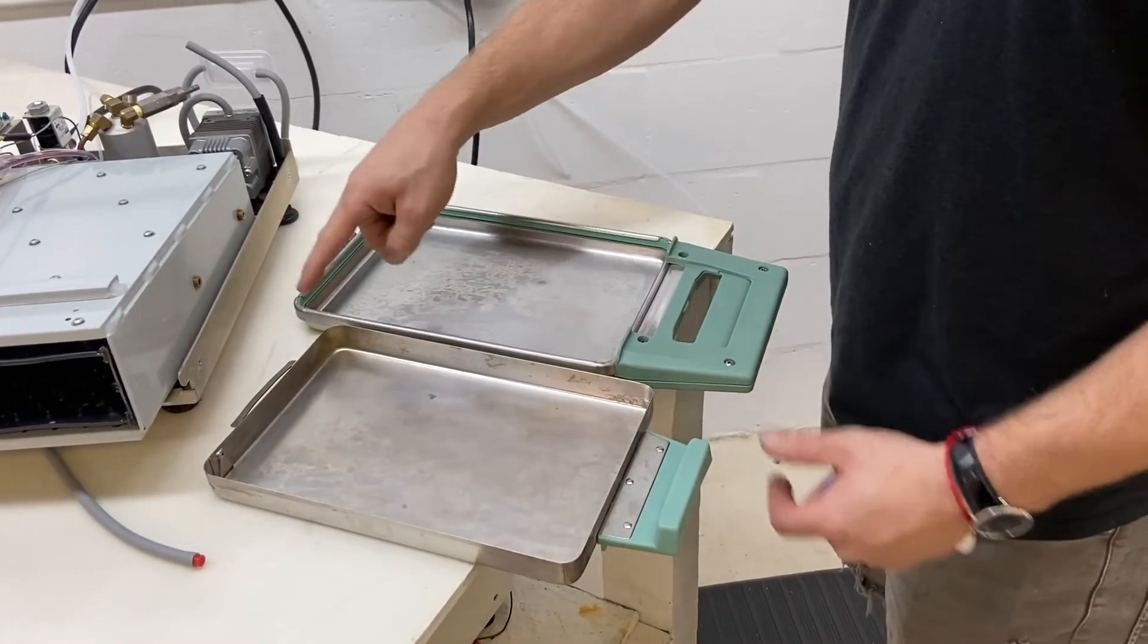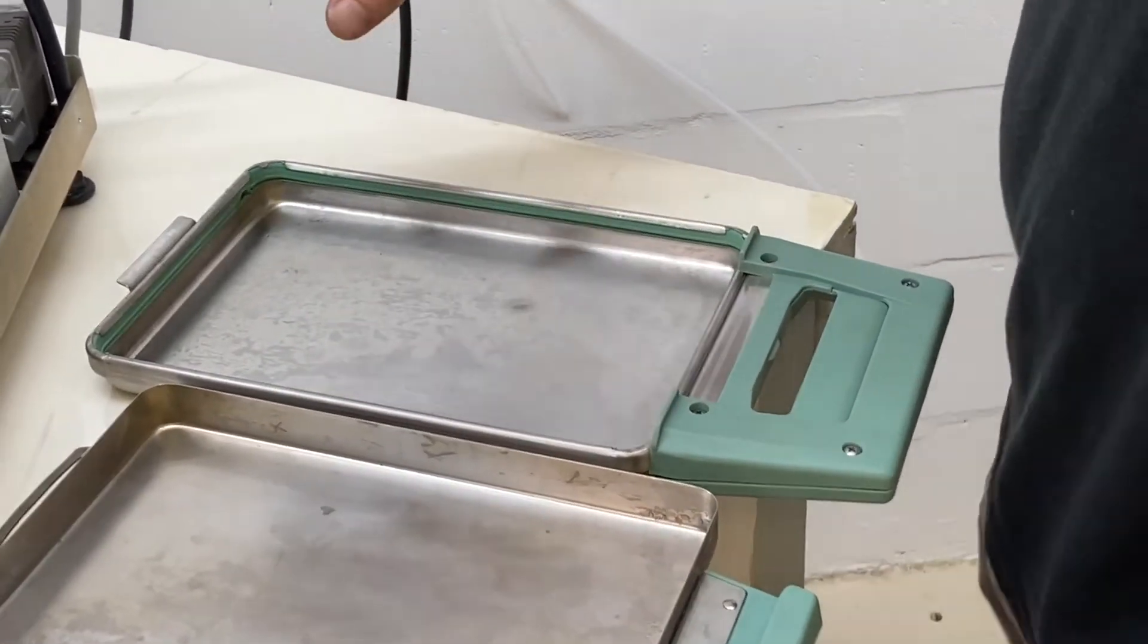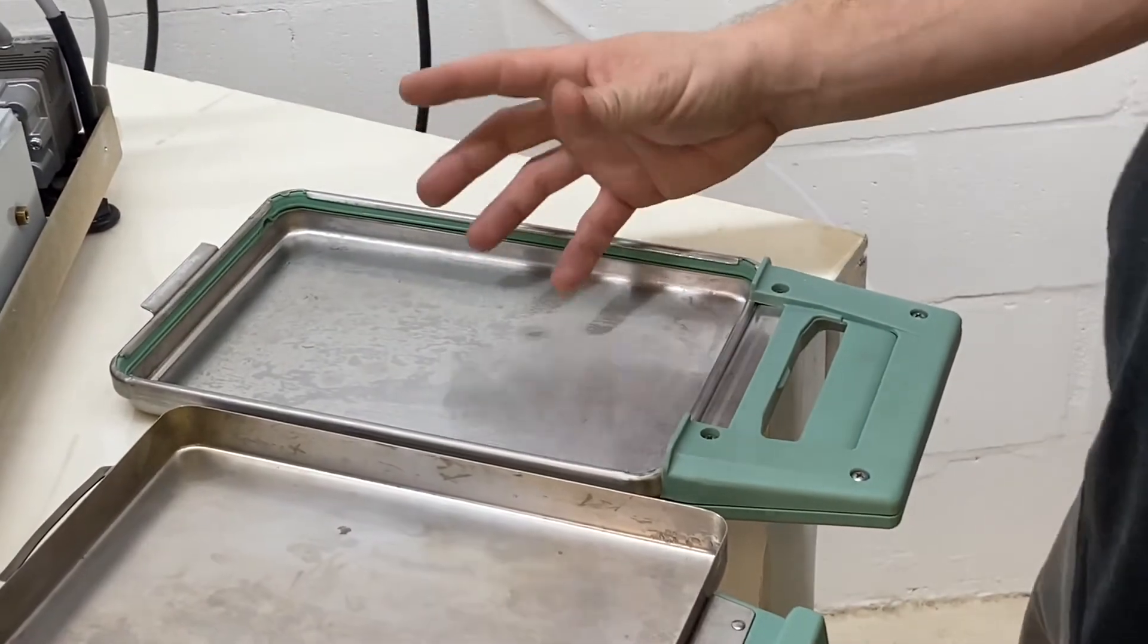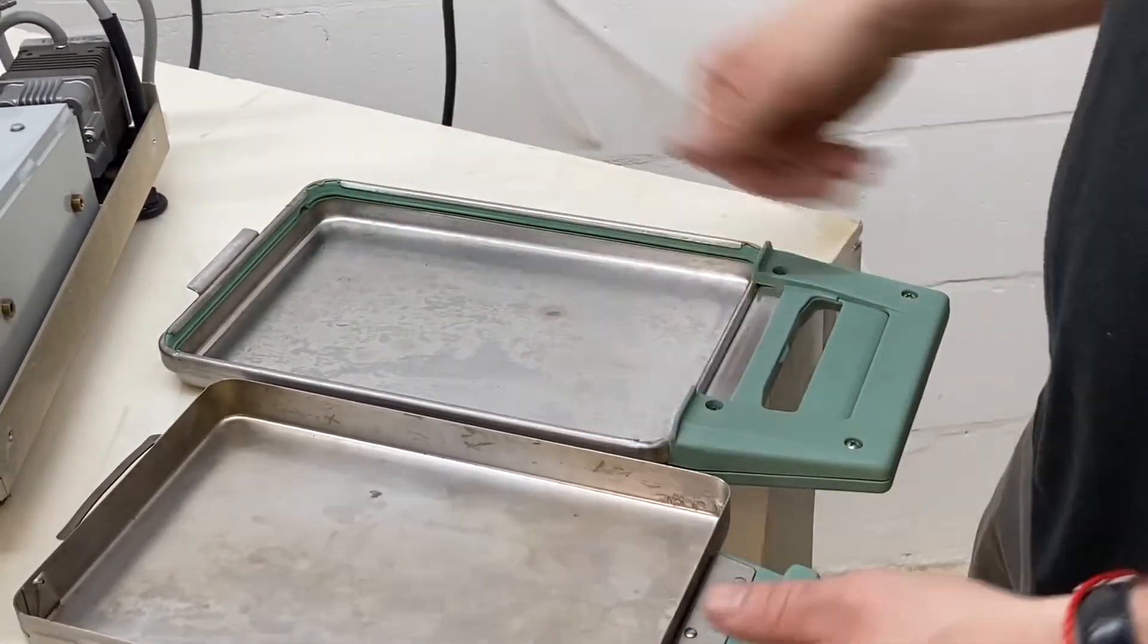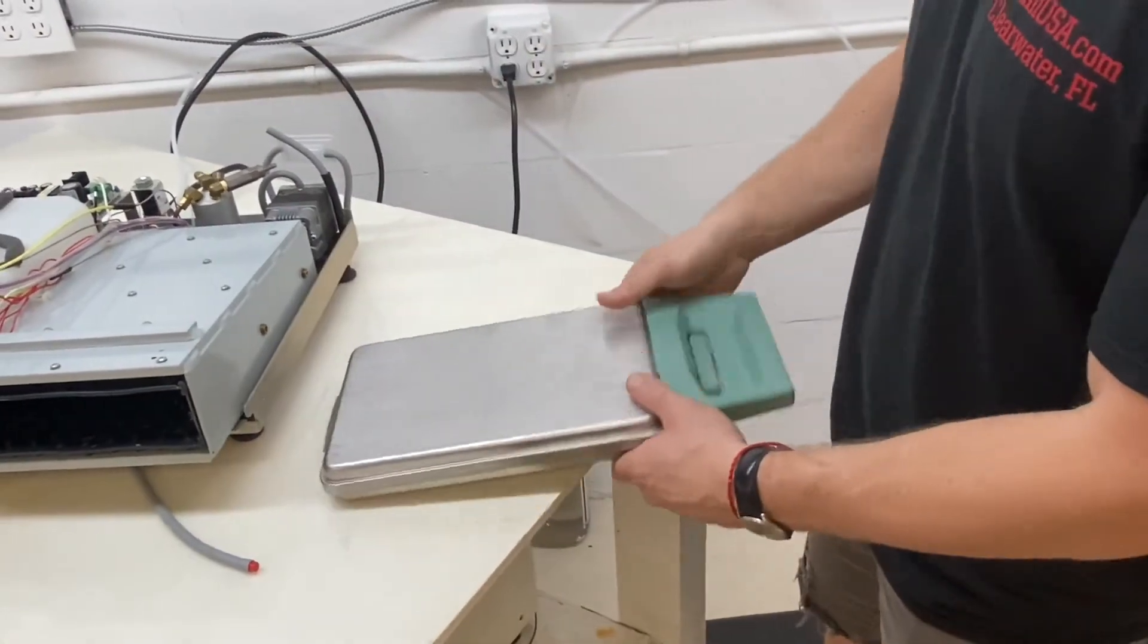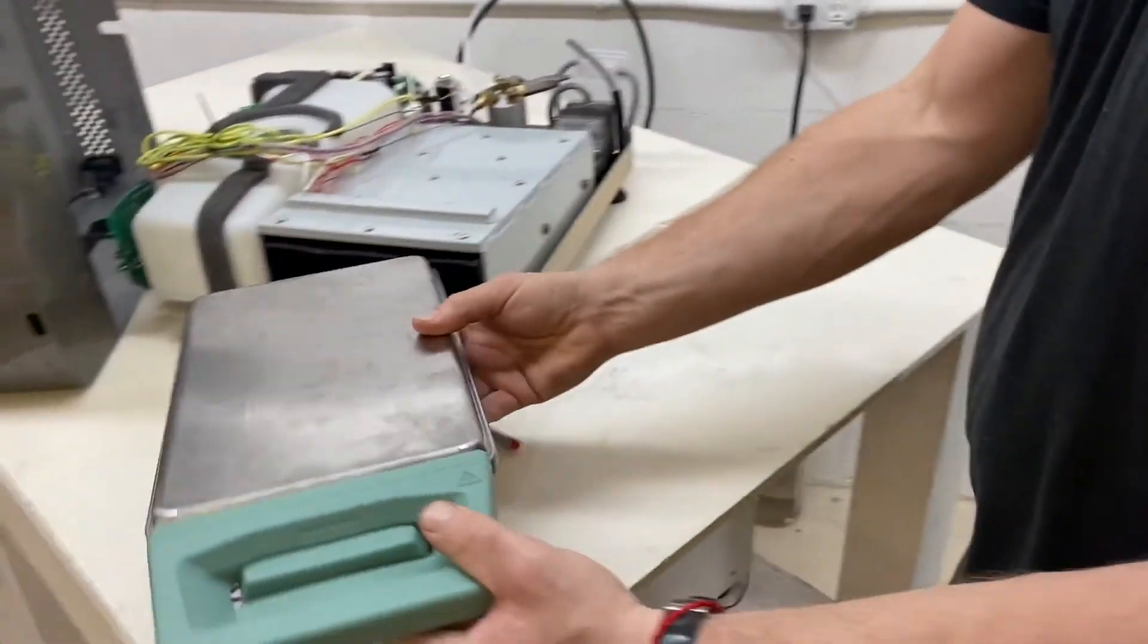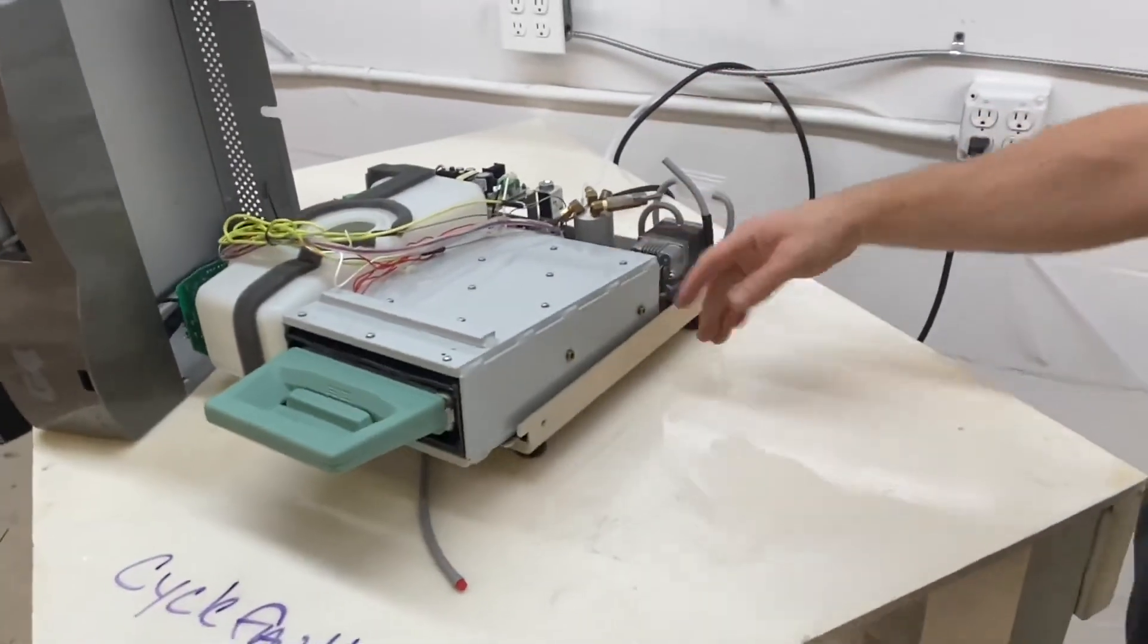Also, if you don't replace the cassette seal every 500 cycles or six months, that could cause a problem. It could be an extremely large load in here. So we're going to identify the leak, stop the leak, and then we're going to observe from there.